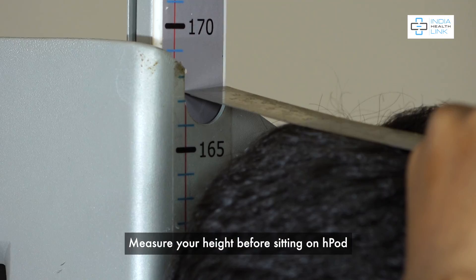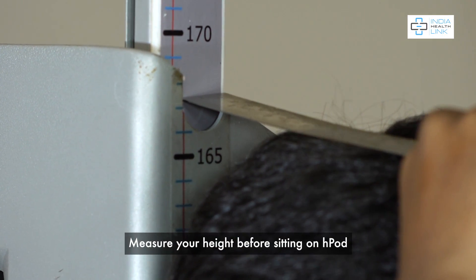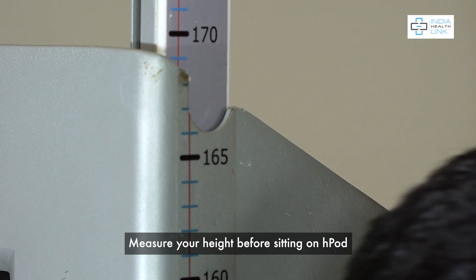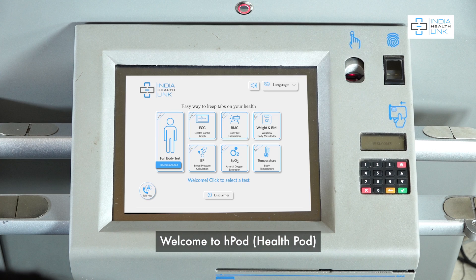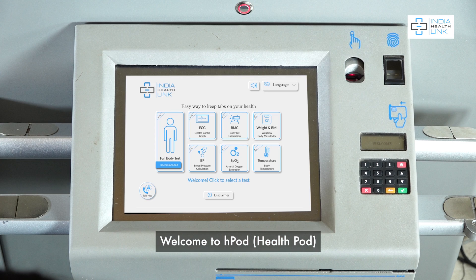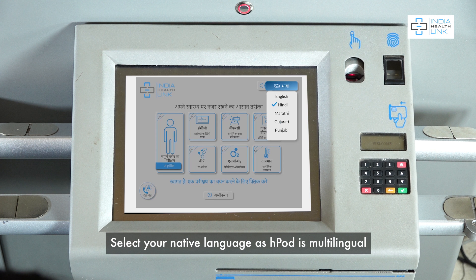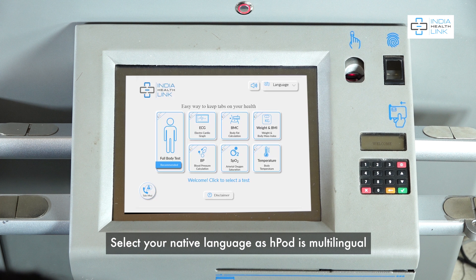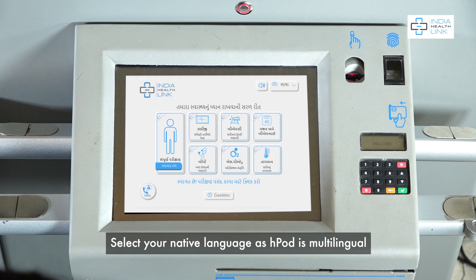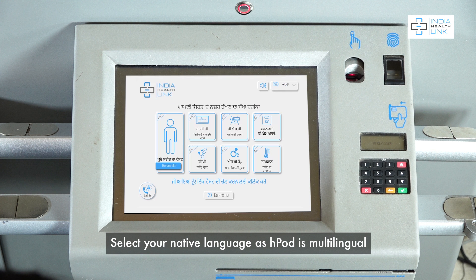Measure your height before sitting on HPOD. Welcome to HPOD HealthPod. Select your native language as HPOD is multilingual.